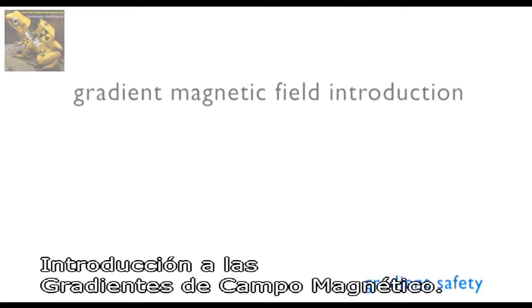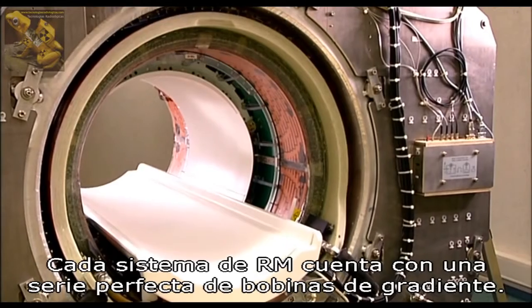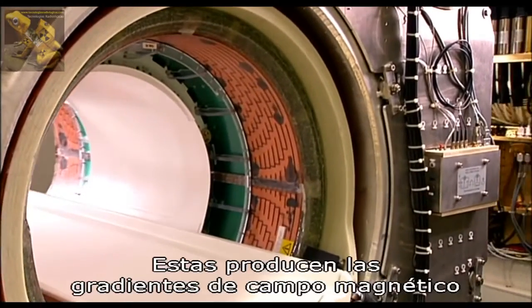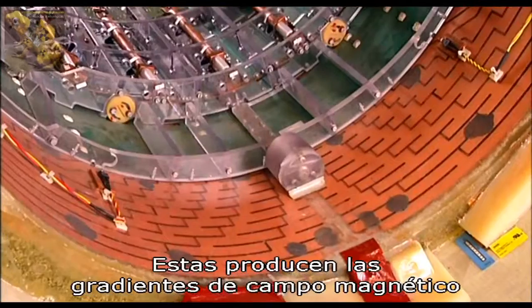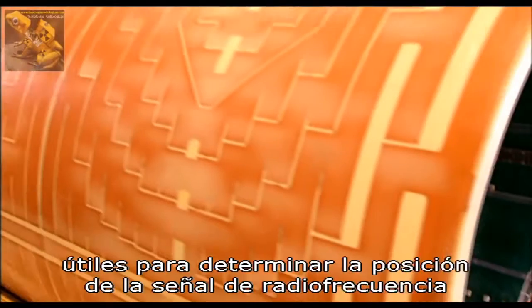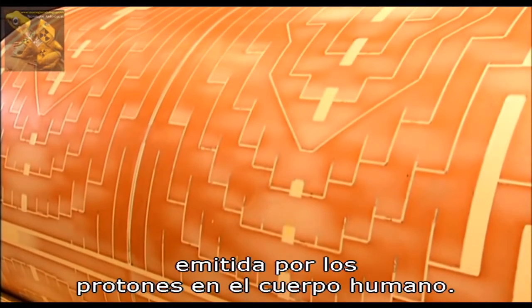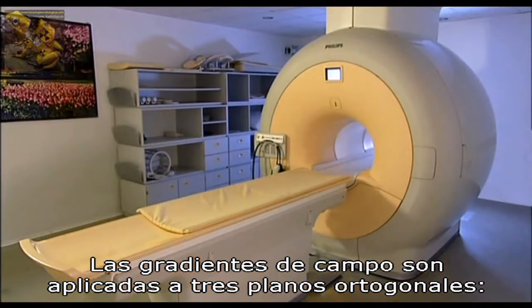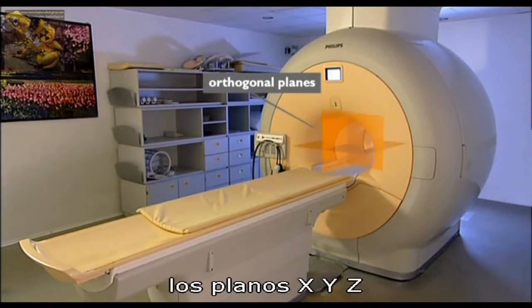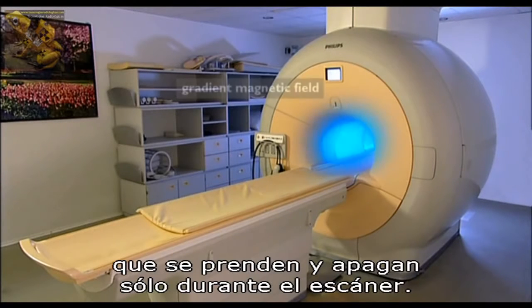Every MR system includes a carefully designed set of gradient coils. The gradient coils create the switched gradient magnetic fields needed to determine the location of the RF signal emitted by the protons in the human body. The gradient fields are applied in three orthogonal planes — the X, Y, Z planes — and are switched on and off only during scanning.